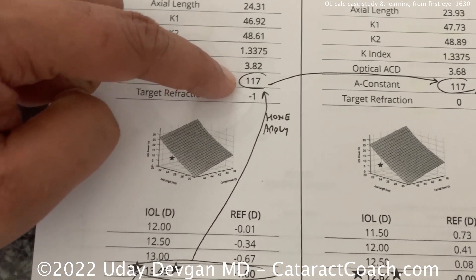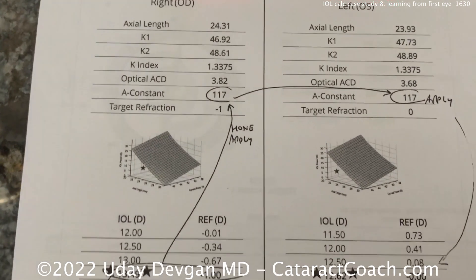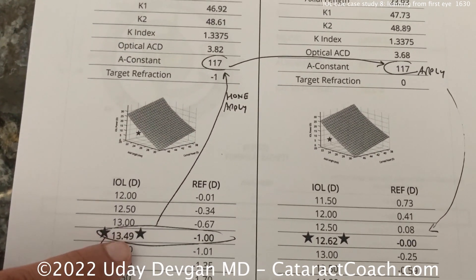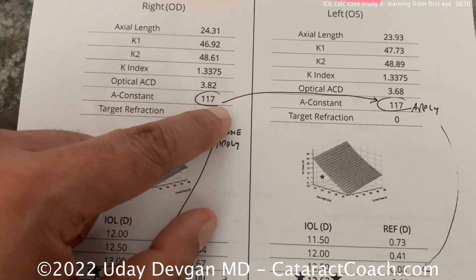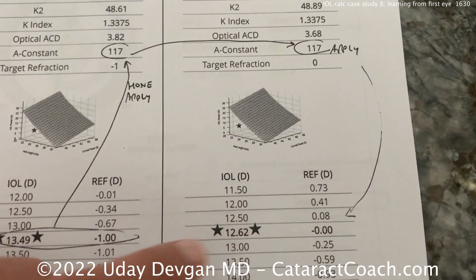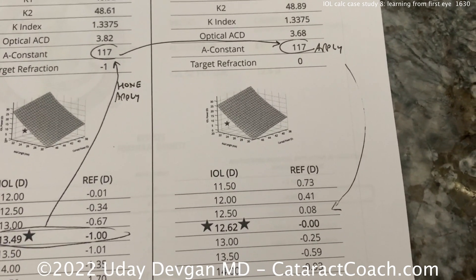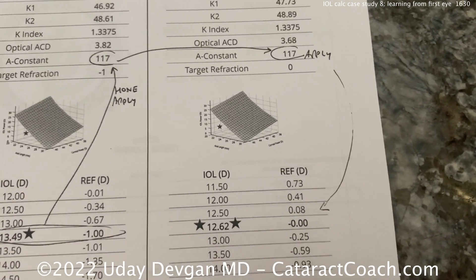So I basically adjusted the A constant to give that outcome. With an effective A constant of 117 — because remember, the A constant varies with IOL power one to one — if I calculate the right eye with an A constant of 117 and put in a 13.5, he ends up minus one. That's exactly the actual result. Now applying that 117 A constant to the other eye, the calculations now say 12.5 or 13 should be the ideal lens power. Since he really wants distance vision, with this EDOF lens for the second eye, I'm inclined to choose the 12.5.